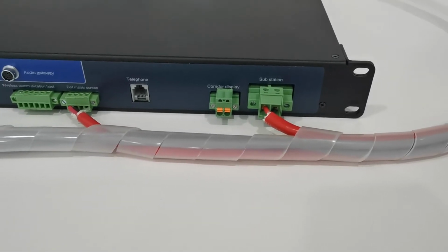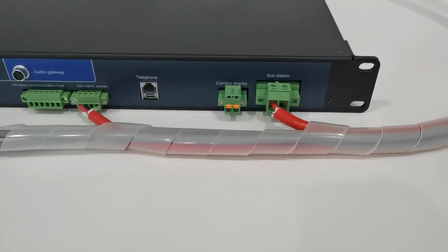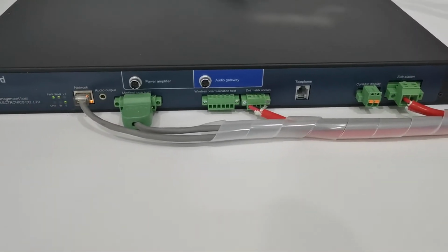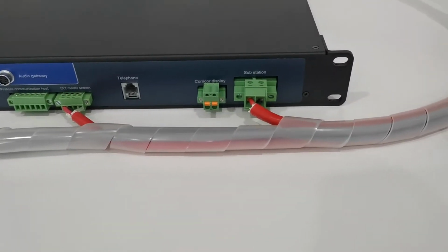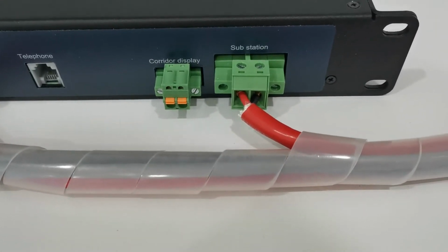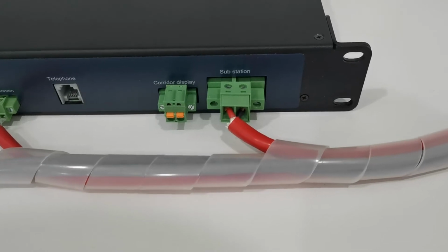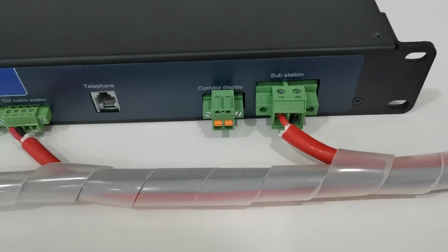For our system, we use two-core wire technology, and this two-core wire networking technology is like a semi-IP solution. We have an IP cable, a network cable, to connect to the hospital LAN, but for the main wire, we use this two-core RVV wire. We use this main wire to line the corridor, and every room's device connects together. No need to distinguish parallel or series connection, and they connect to the main wire. Only the main wire goes to the host.